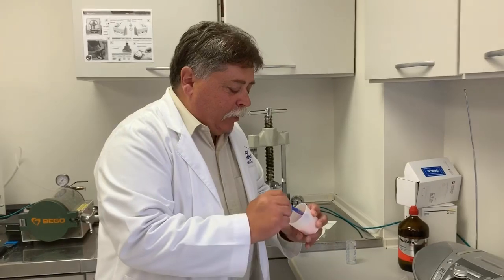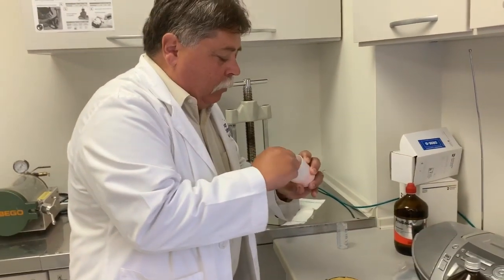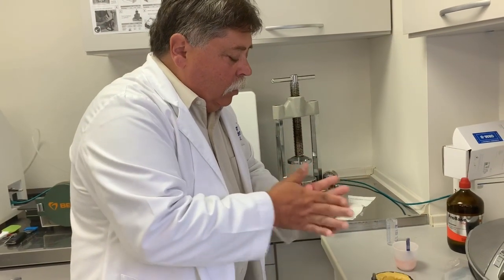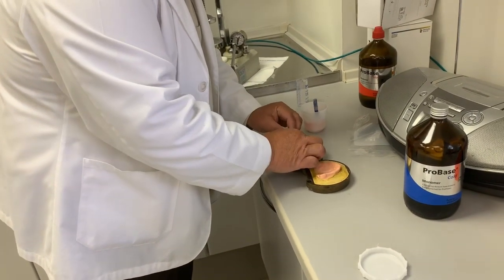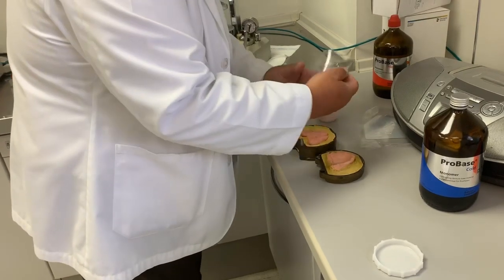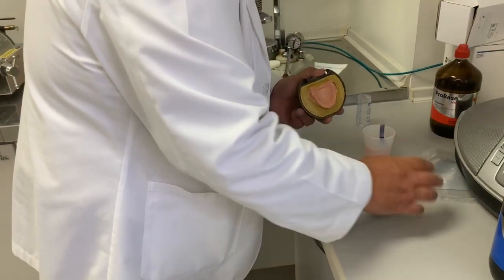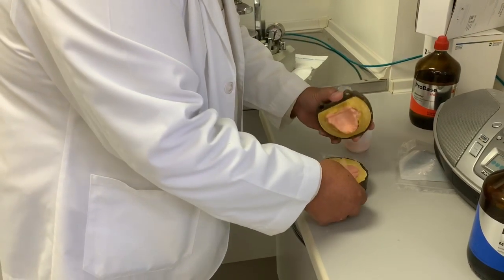All right, the acrylic is set up now into what we call a doughy state. I'm going to grab as much as I can in one shot and roll it into a couple rolls that I can pack the denture with. Now we use just a clear sheet to do the first pack. This is called trial packing. We want to get a nice dense mix of the acrylic and get all the air out of the denture base.